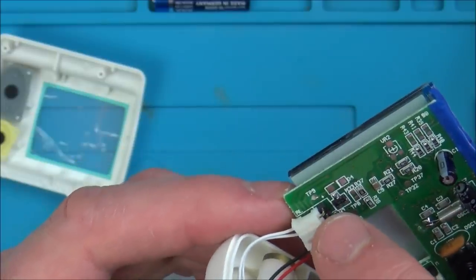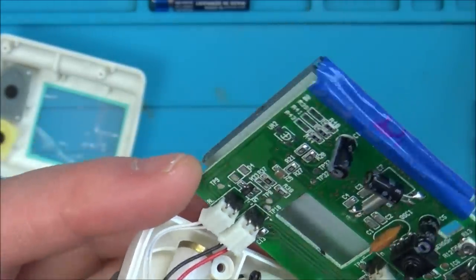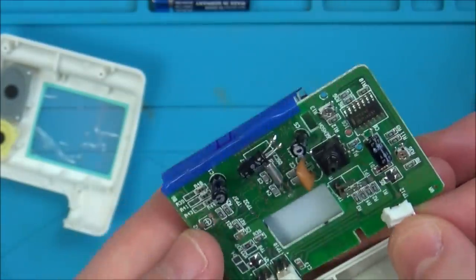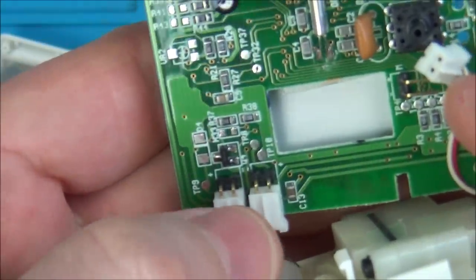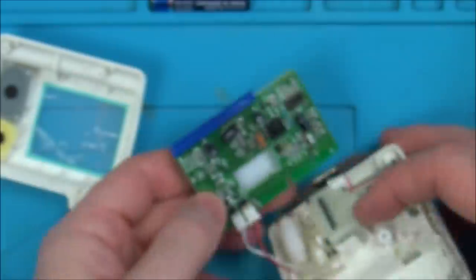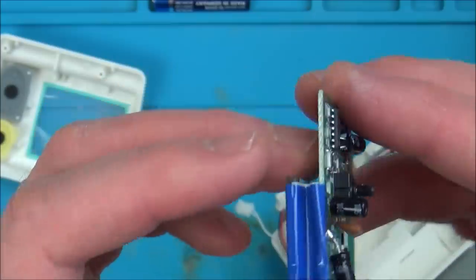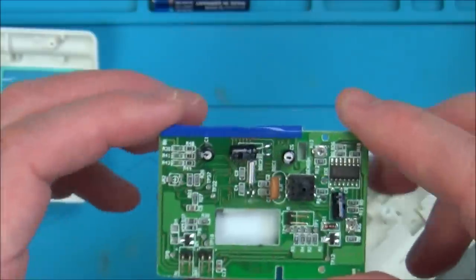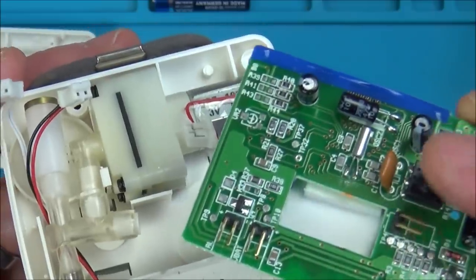So this one's labelled up as battery, this one is labelled up as RL - not sure what that means - and this has got M for motor. Let's undo all these. Each of them have the points sticking up - you can see the ridge sticking upwards. So I think all that is going to be working fine. That's the thing going through here to the actual - just call it a balloon - but that's what's going to be doing the measuring. That component there.